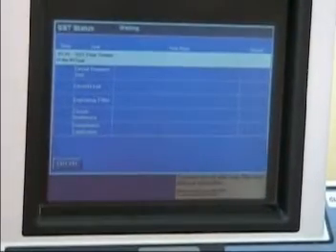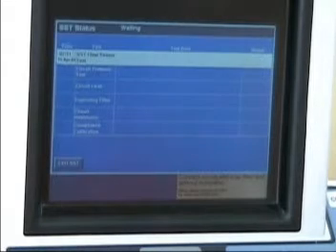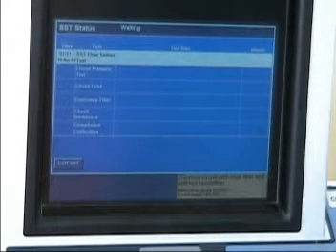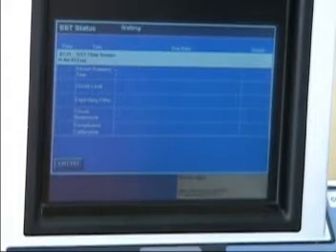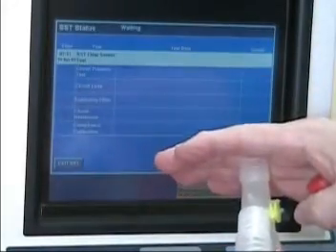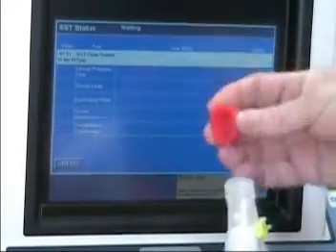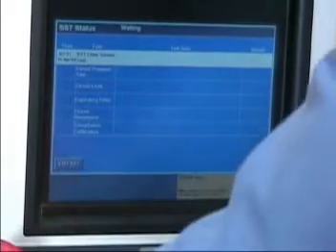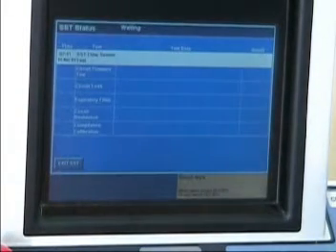It goes into the next screen. We want to connect the circuit with humidifier filter — we'll accept that. It says block the Y. We can hold our hand over this if we want, or I prefer this small cap so I don't have to hold my hand for a lengthy period of time. So we've blocked it, and now we're going to accept.